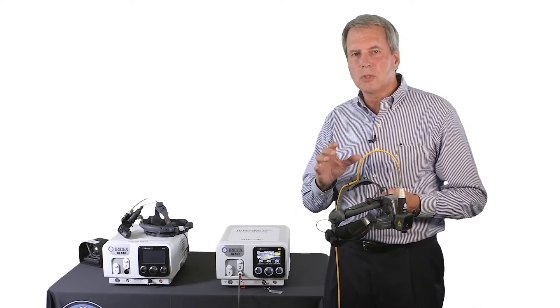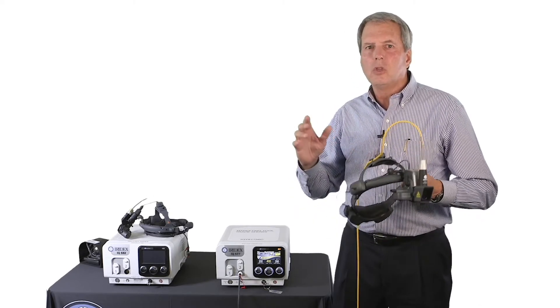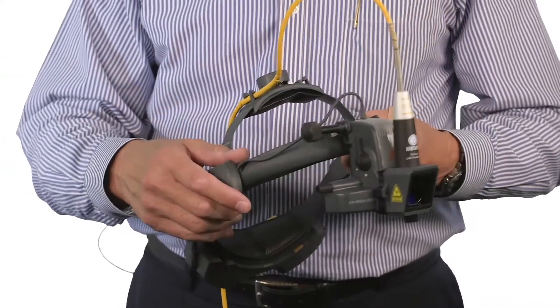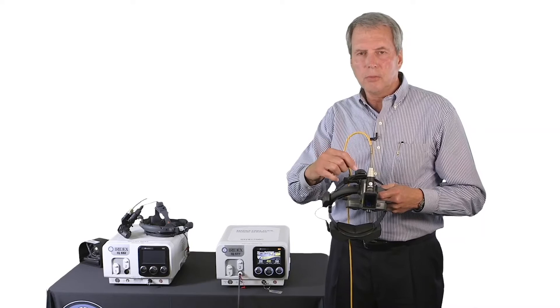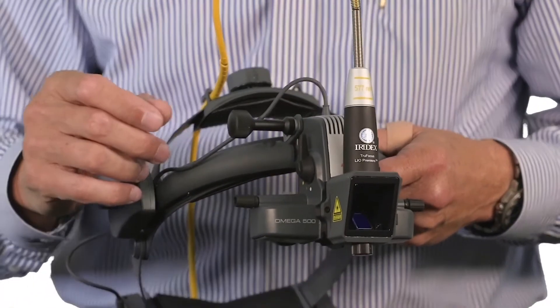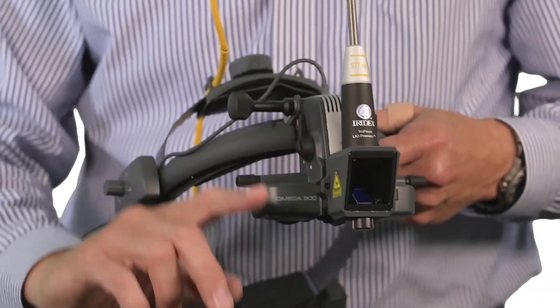The difference with the TrueFocus is that you have a two mirror system. And with that, you have the illumination coming in from the top mirror, and you have the laser aiming beam and treatment beam coming in from below.